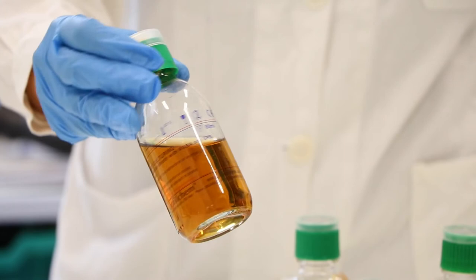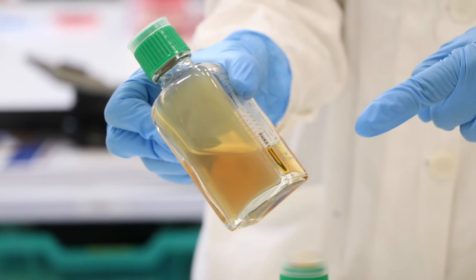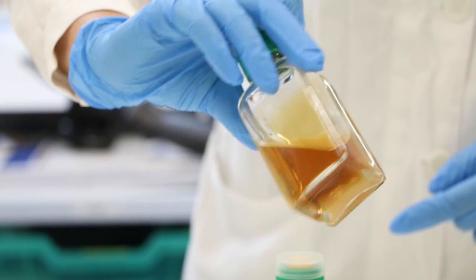Instead, you can have bottles designed for use in a conventional incubator. They can be commercial or homemade, containing a broth and sometimes an agar slant.